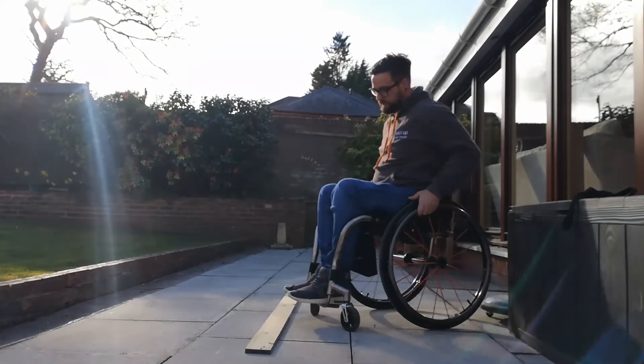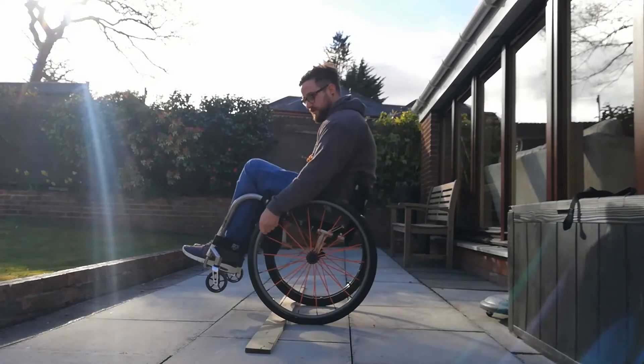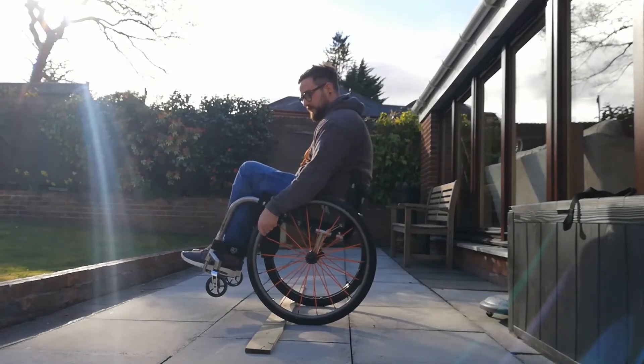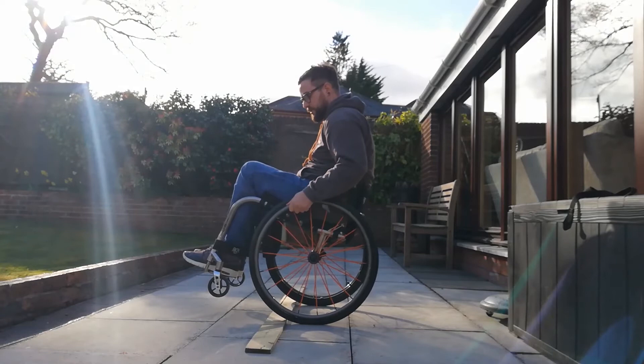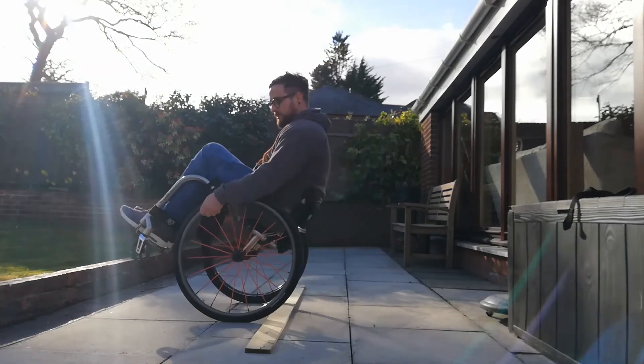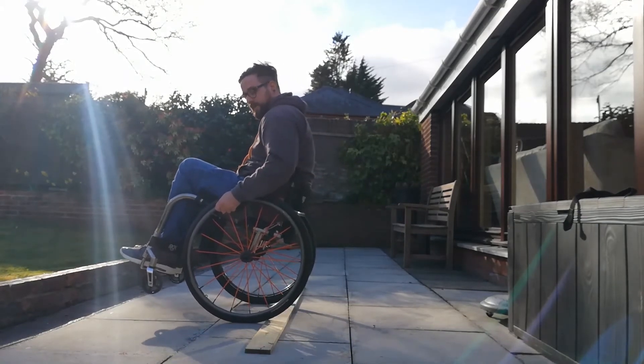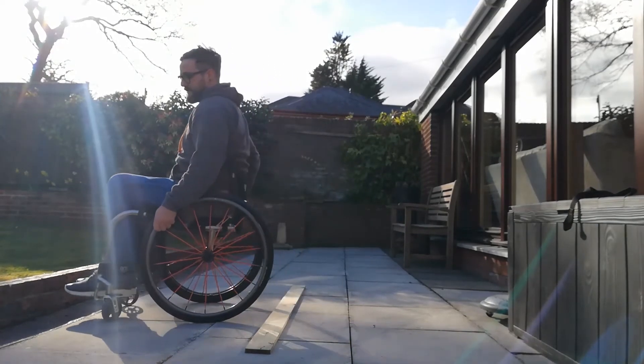Getting up into a back wheel balance, coming towards the object, locking our drive wheels against it, dropping the front slightly while we roll away, and then a push up and in — front down.